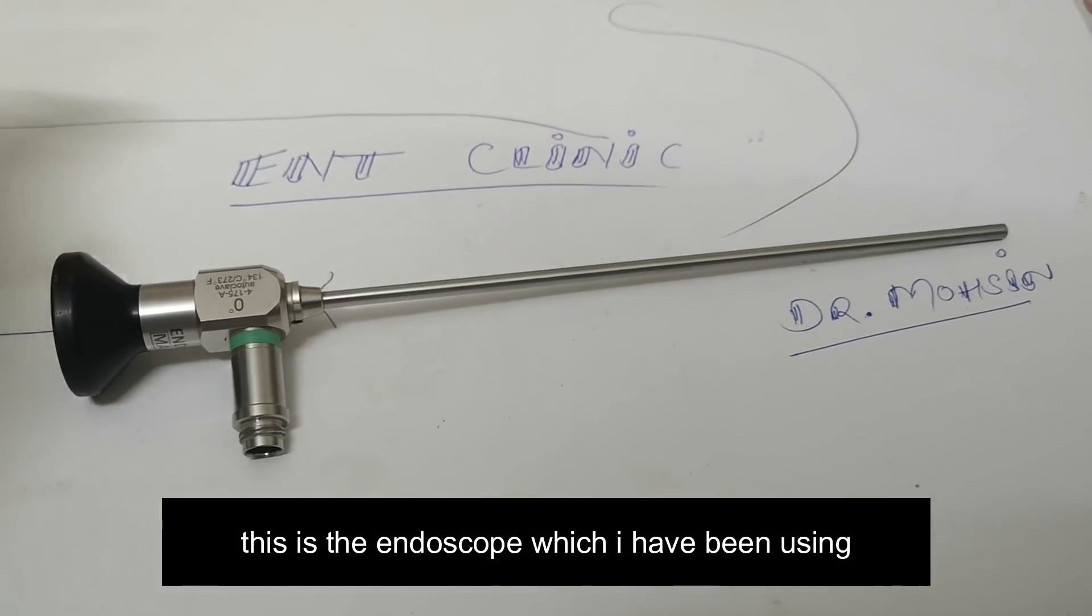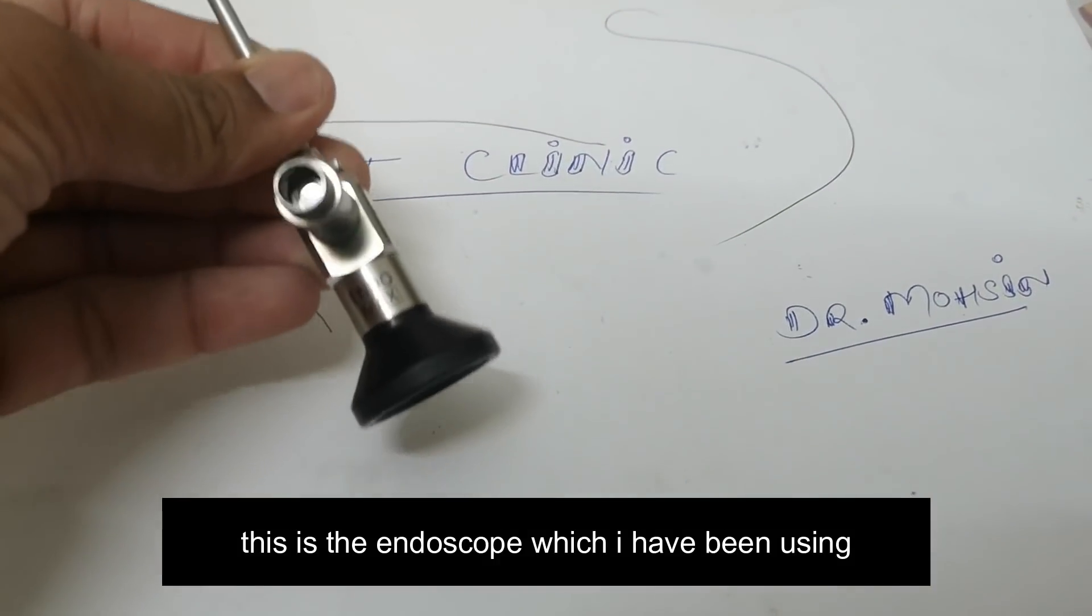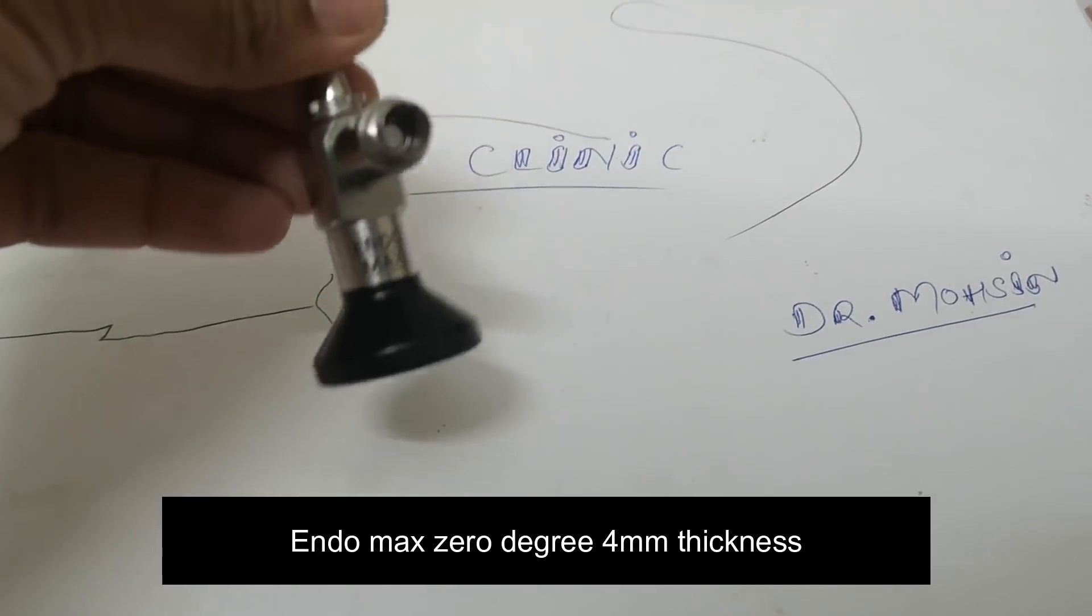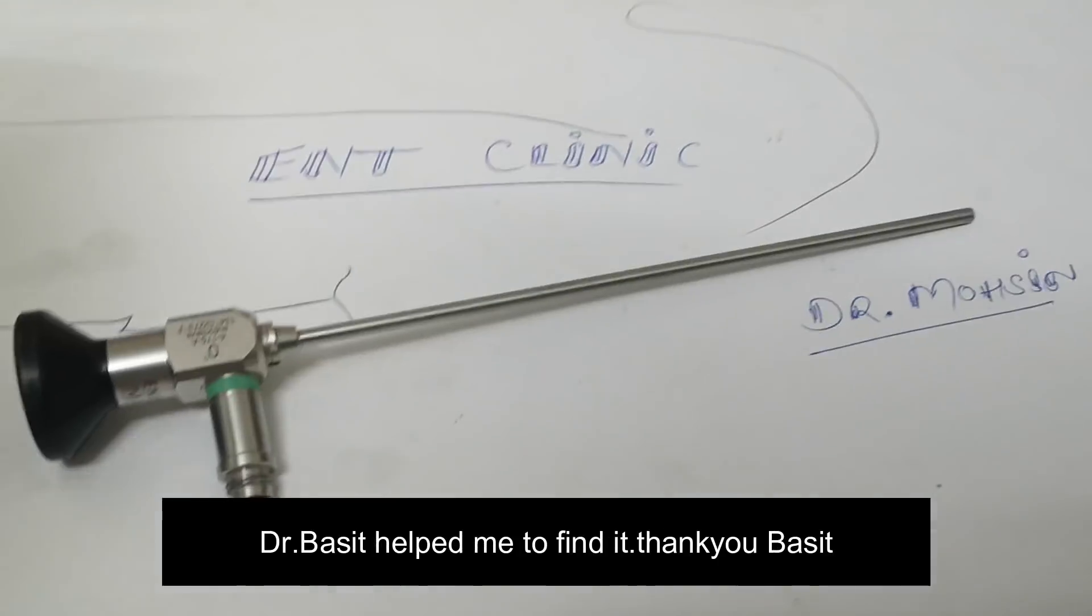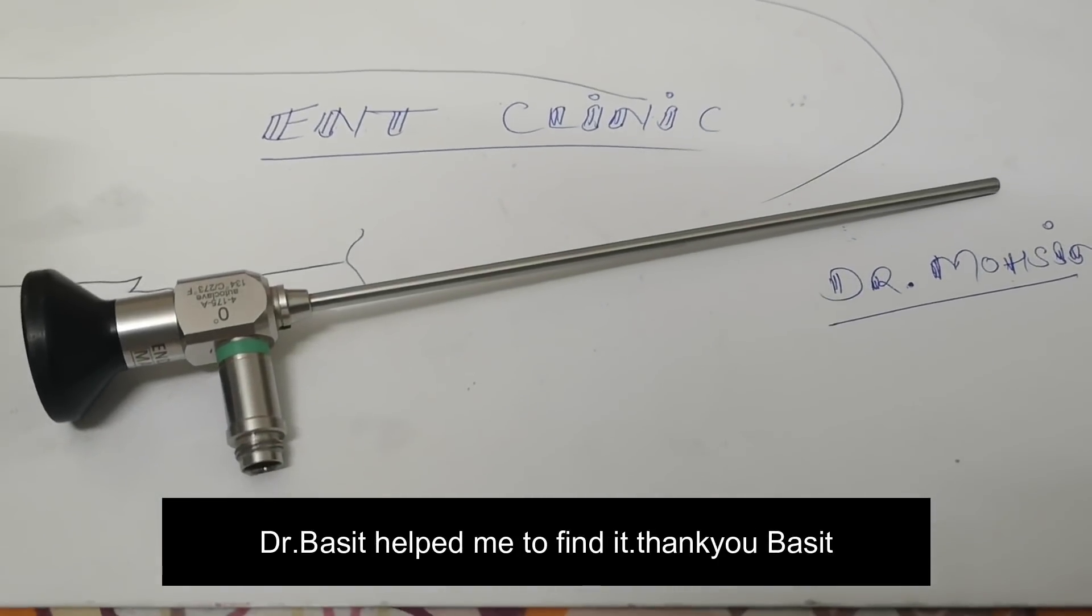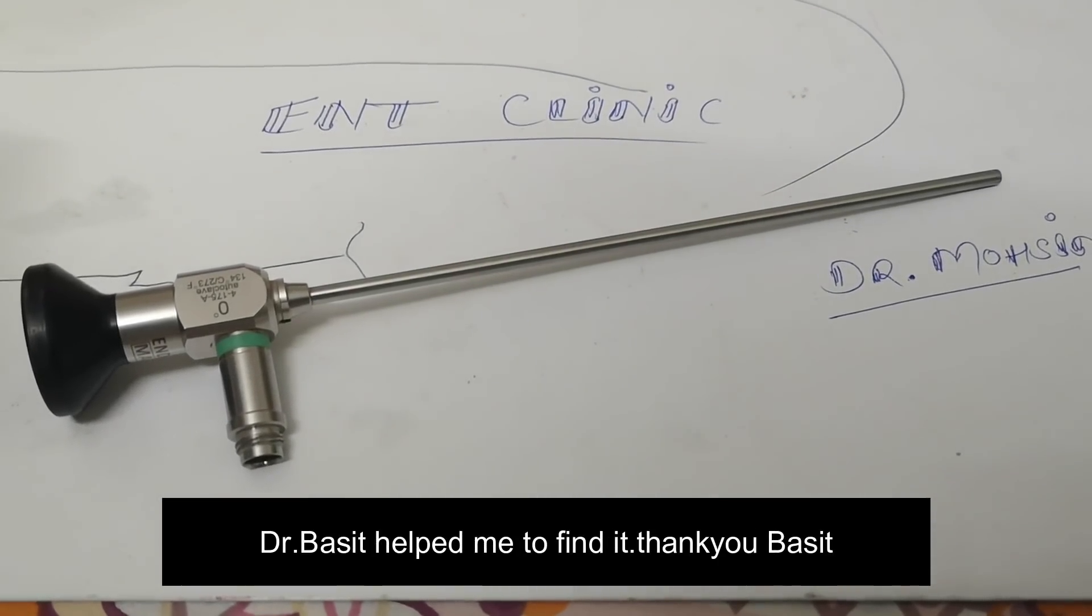This is the endoscope which I have been using. It is the Endomax one, 0 degree, 4mm thickness endoscope. Dr. Basit helped me to find it. Thank you Basit.